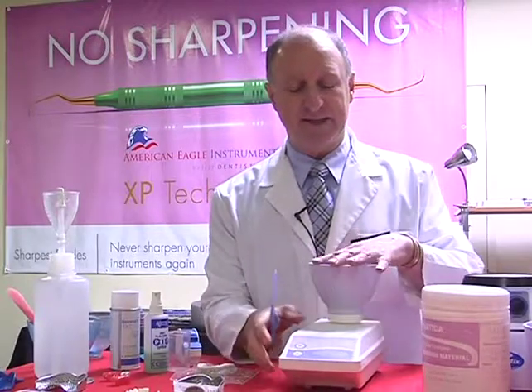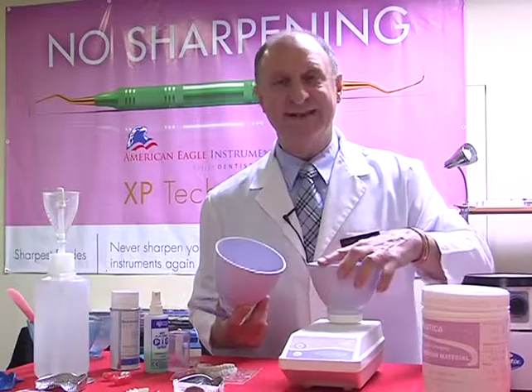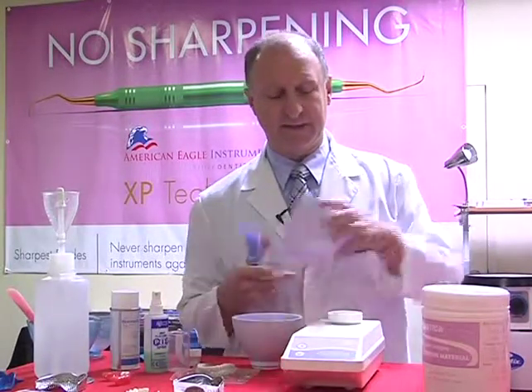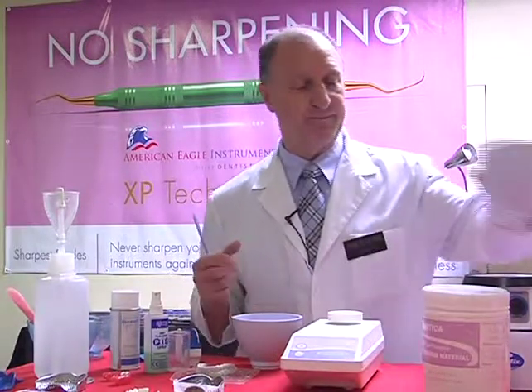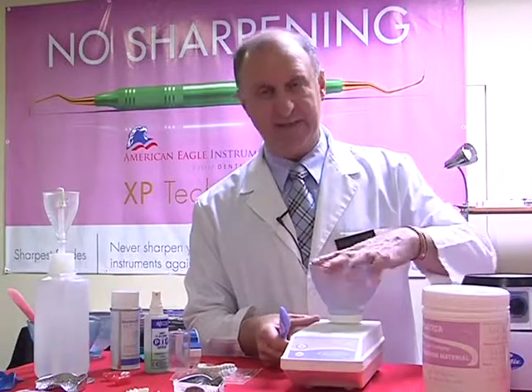You also notice that there's the alginate bowl and there's a larger bowl. The bowls add and detach quite easily with like a bayonet fitting. So it's possible to, again, mix up stone, which we'll show a little bit later on in this procedure. So let's show you how to mix the alginate using the alginator.